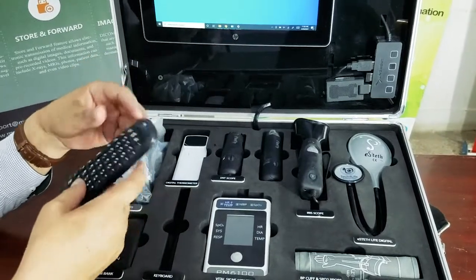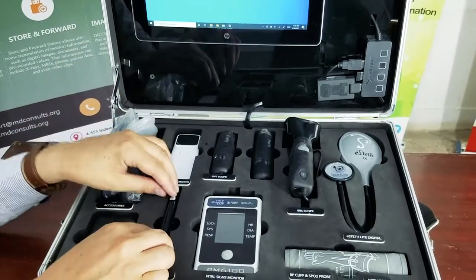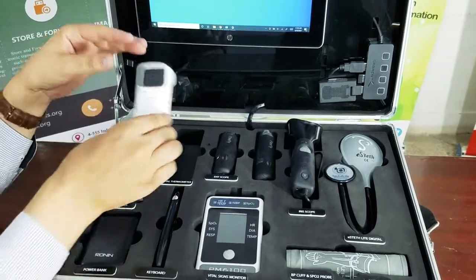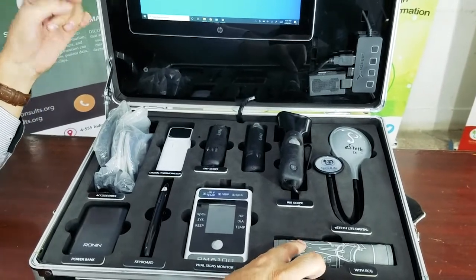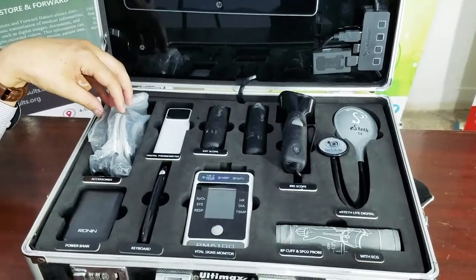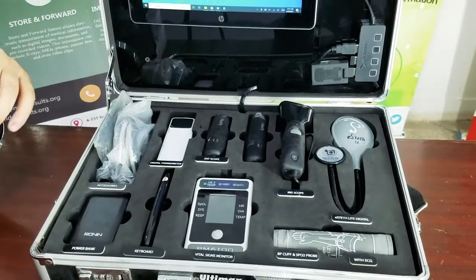It comes with a wireless keyboard and a mouse. It also comes with an infrared thermometer, a blood pressure cuff which goes with the vital signs monitor, and a number of other accessories which are necessary to measure vital signs on the vital signs monitor.